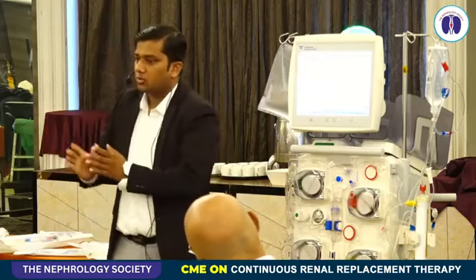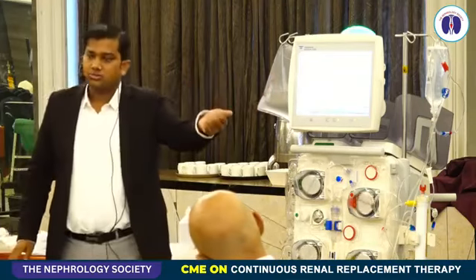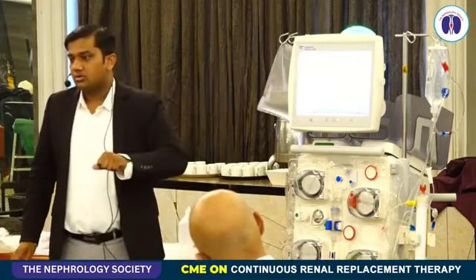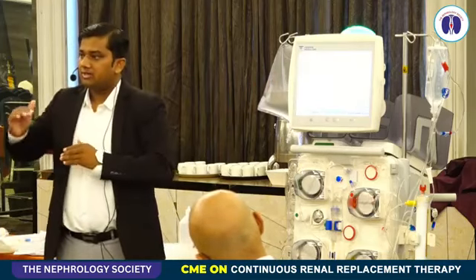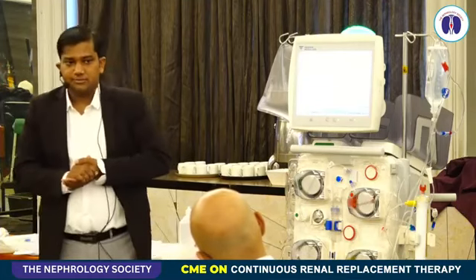So there's a protocol, but it is software driven, so beautifully designed. You can increase the dose of calcium or decrease the dose of calcium, and with respect to that the rate of citrate is accordingly adjusted.